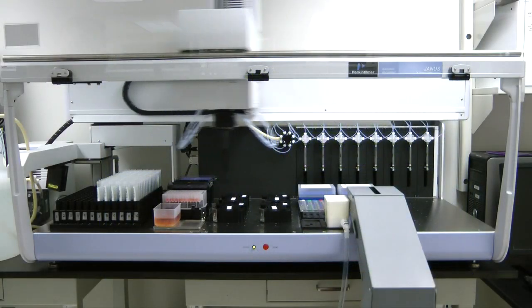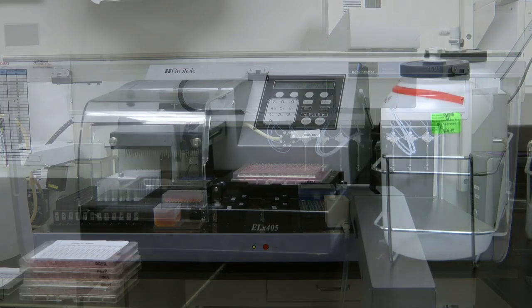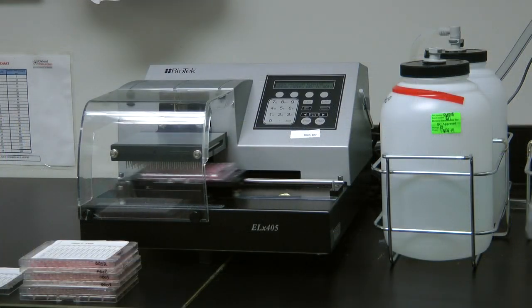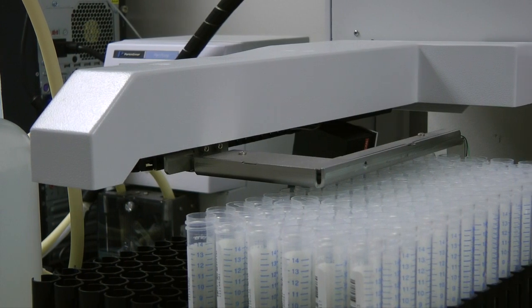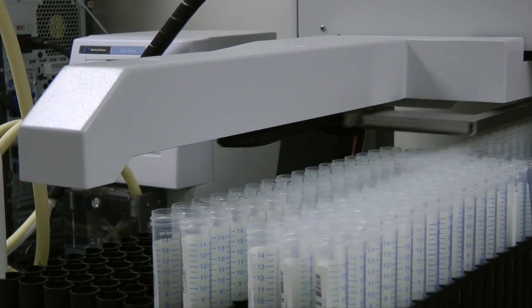Using these processes and instrumentation, our laboratory routinely processes hundreds of samples per day and has the capacity to accommodate thousands of samples if necessary.